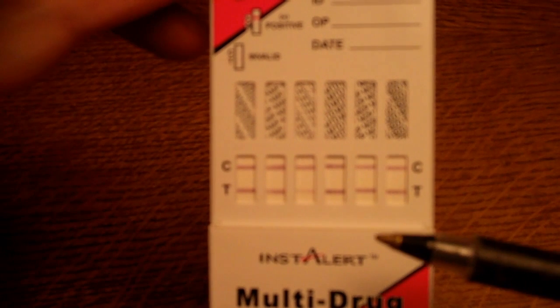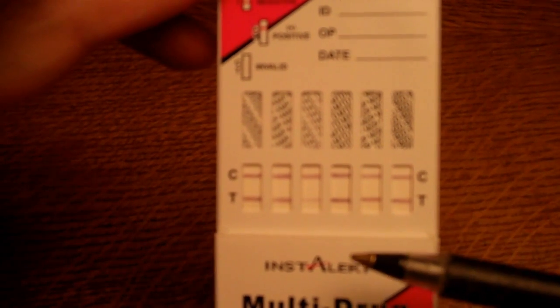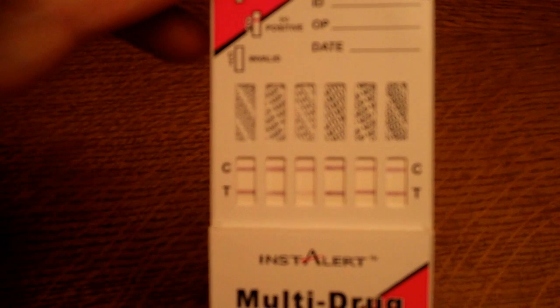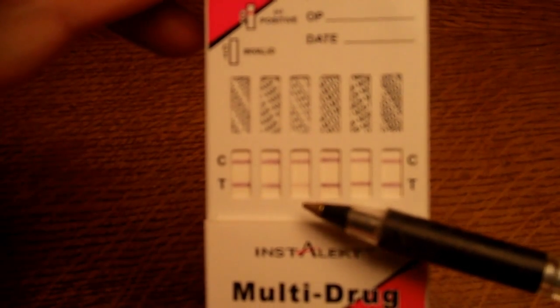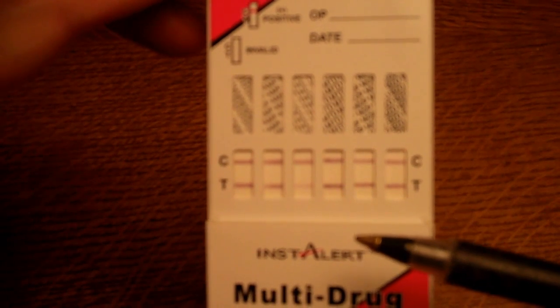This obviously begs the question: is this just positive or just negative? The answer is that reading these test results at 10 minutes, you have to interpret this as a clear negative result for all six drug groups, because there is a test line showing. It may be faint, it may be thin, it may not actually go right the way across the test window in some cases.